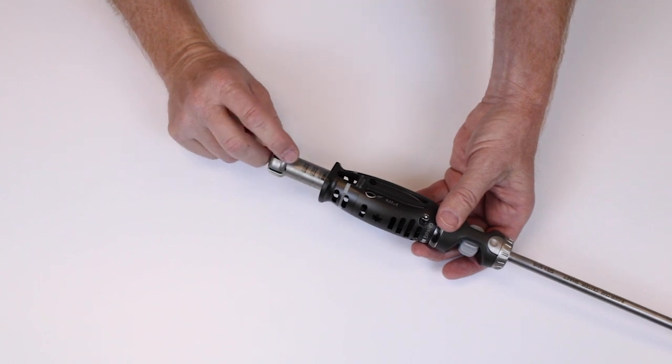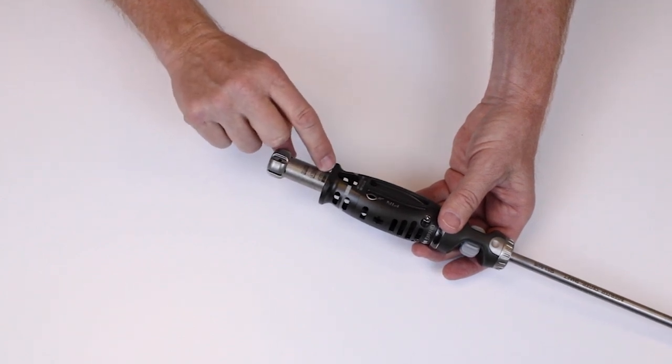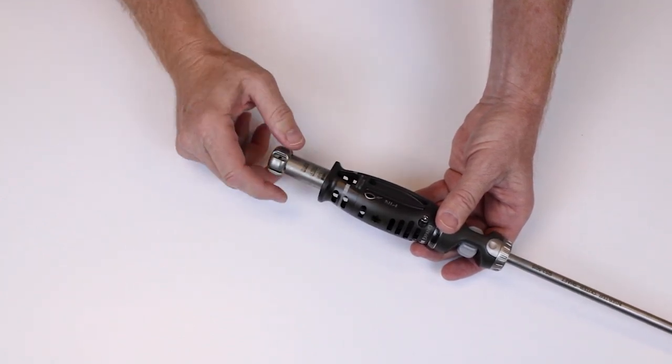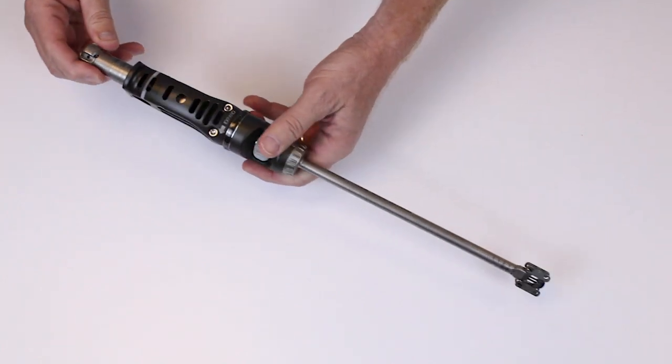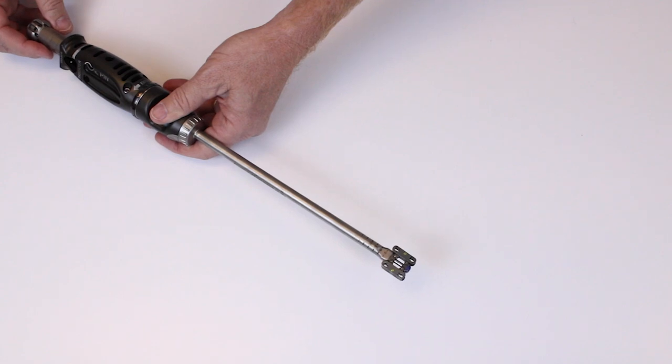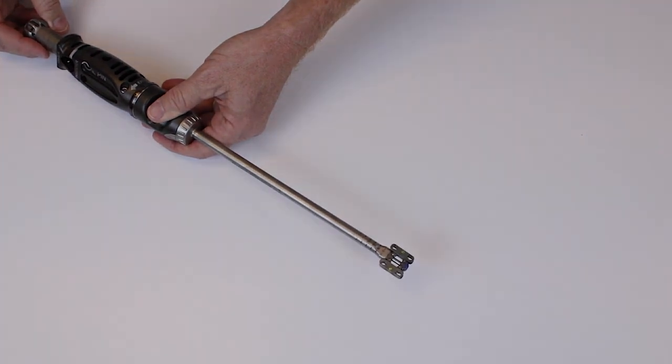Be sure to impress upon the surgeon that we want to expand so we see a little bit of silver below that thick black vertical line. This ensures that the implant will be fully expanded in order to accept the lockout screw.